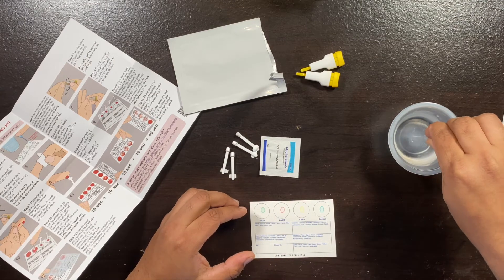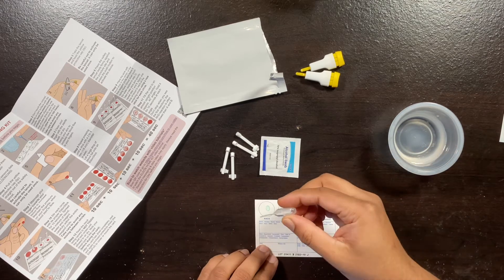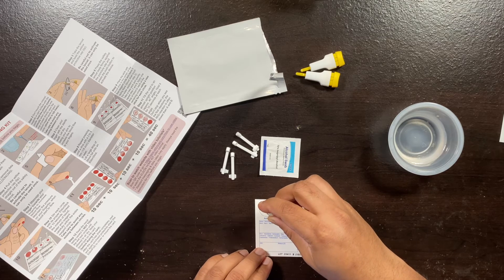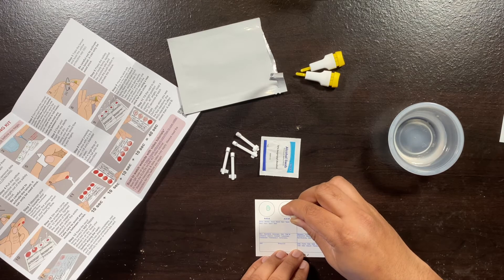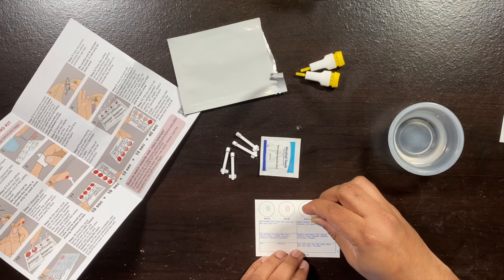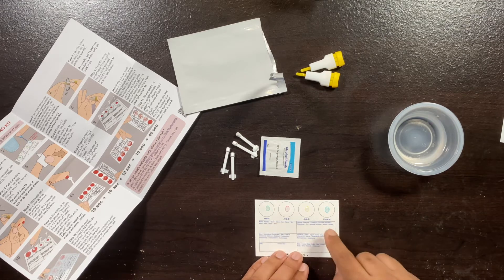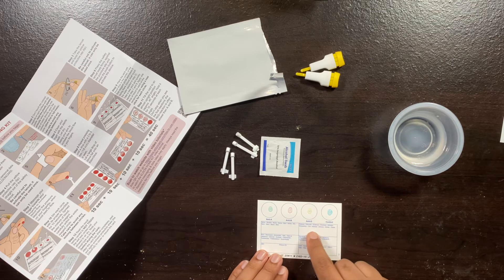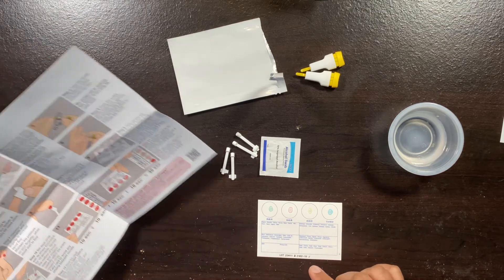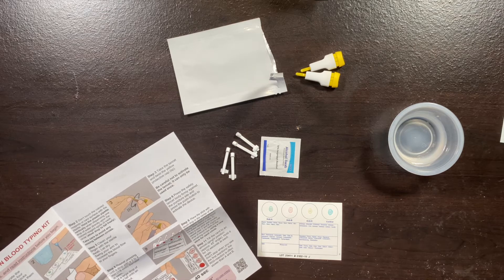Second step: I'm going to get some water and fill up the dropper. Then drop one drop into each circle — make sure when you drop it you don't hit the circle directly. Keep the dropper about one centimeter above and drop one drop each. So I drop one drop of water into each circle so the reagent, which was dried, will now spread. Do not touch the color reagents or the card surface.